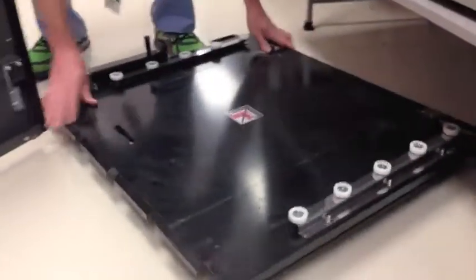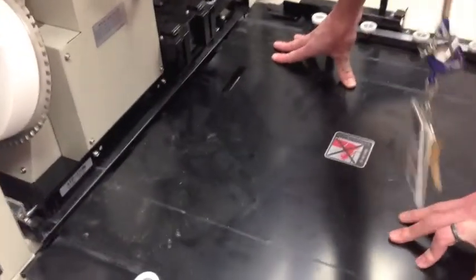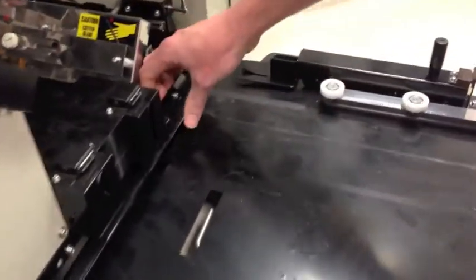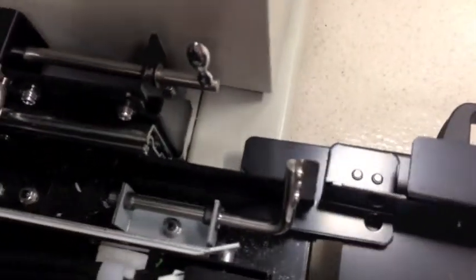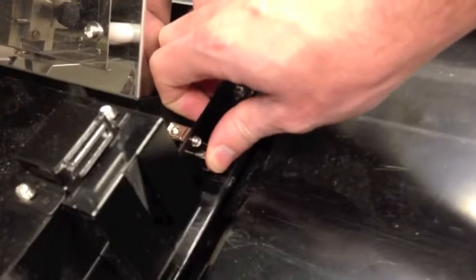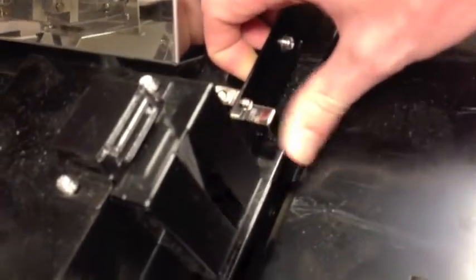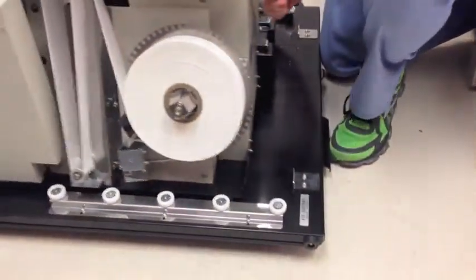Wheel in the empty trolley and align it at the front of the machine using the guide at the right. Push it forward. Brace the trolley with your knee or foot, then push the small silver button to release the rest of the LPU and pull the LPU straight out and onto its trolley.